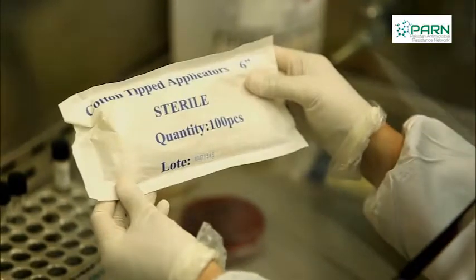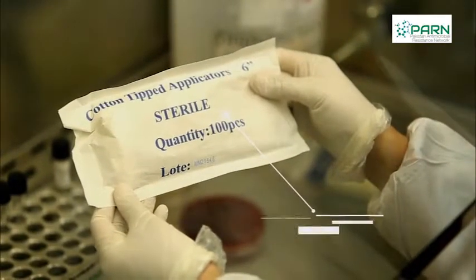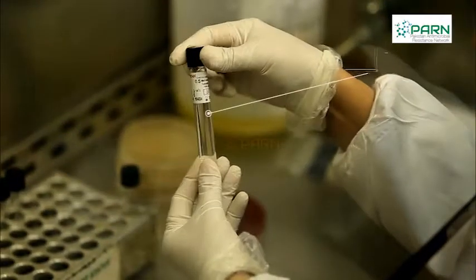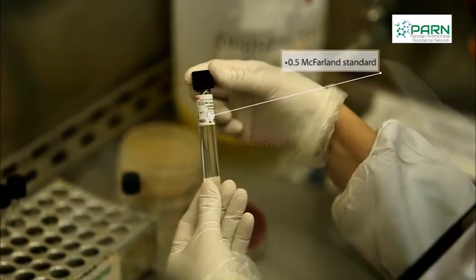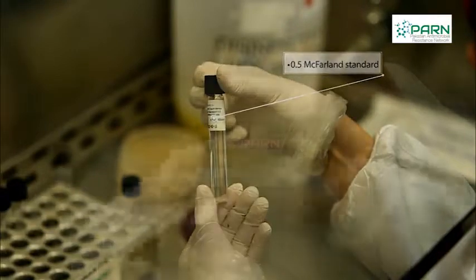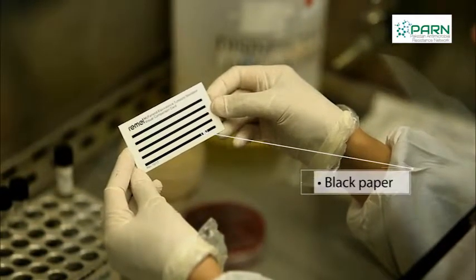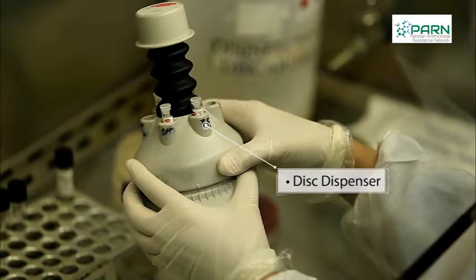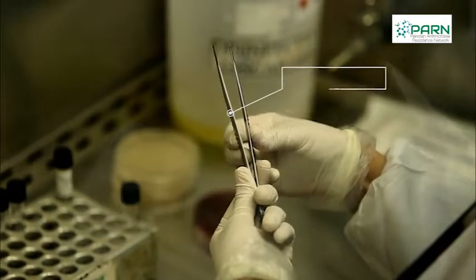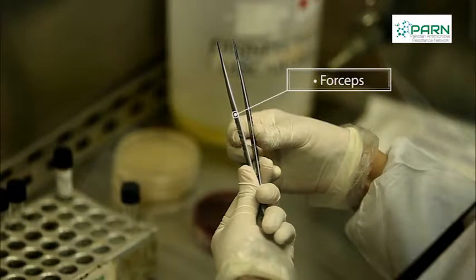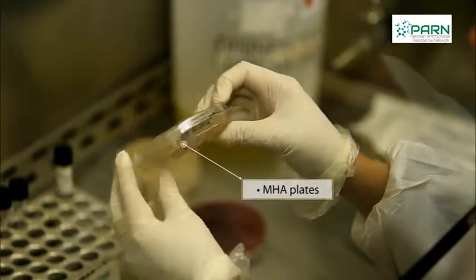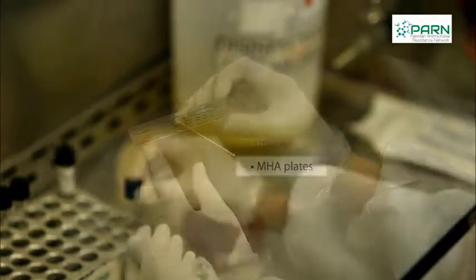For Kirby-Bauer disc diffusion testing we need sterile swabs, 0.5 McFarland standard, black paper, antibiotic dispenser, forceps, Mueller-Hinton agar plates, and sterile saline.